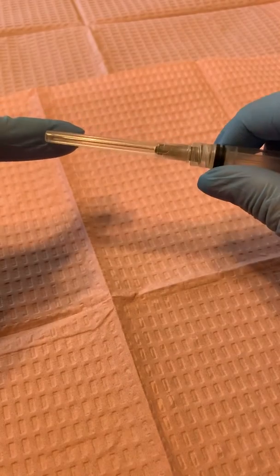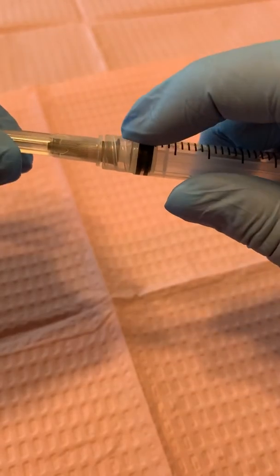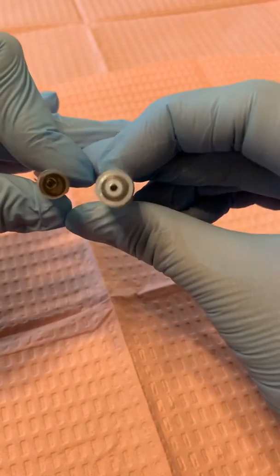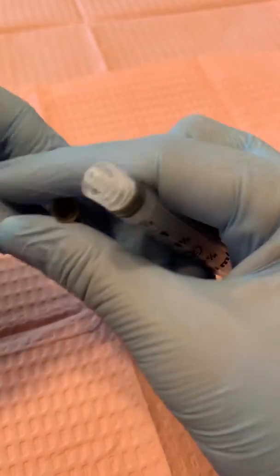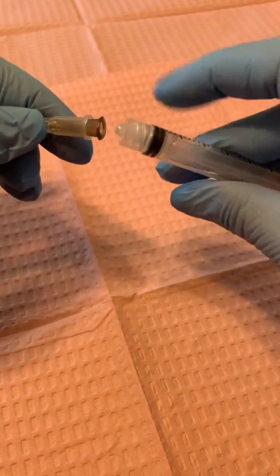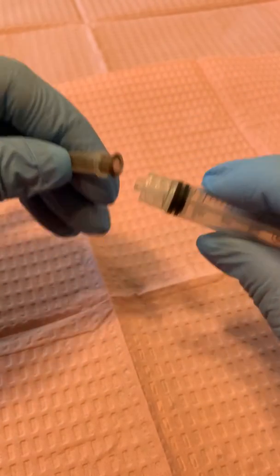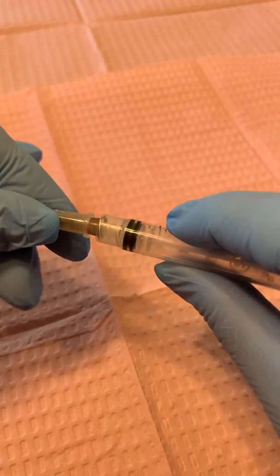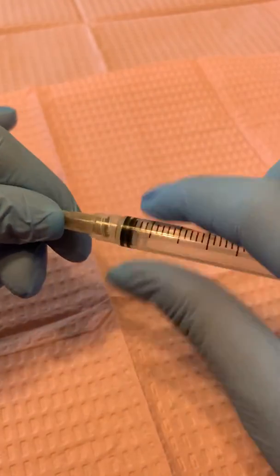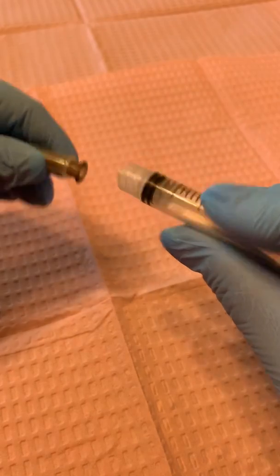We have the super long needle here — one and a half inches. The luer lock, if you can see, has ridges kind of like a screw, so you have to unscrew it. You can see the ridges there. Inside the hub it also has ridges for you to be able to luer lock it in. You just put it on the tip and go righty tighty — clockwise is righty tighty, counterclockwise lefty loosey is to undo it.